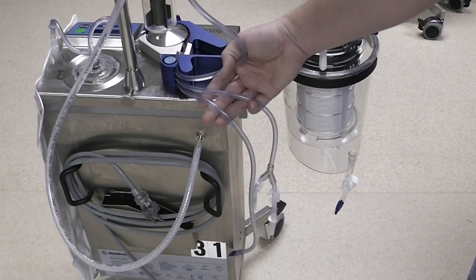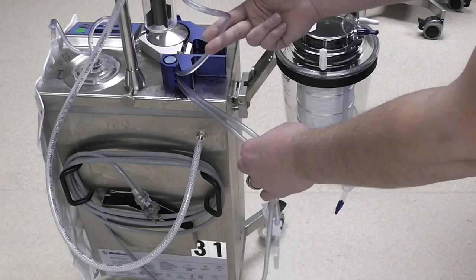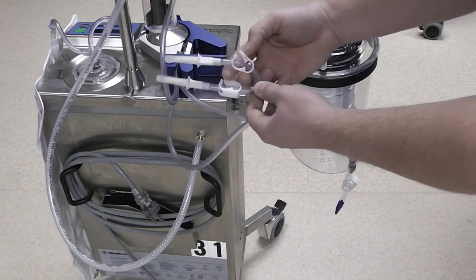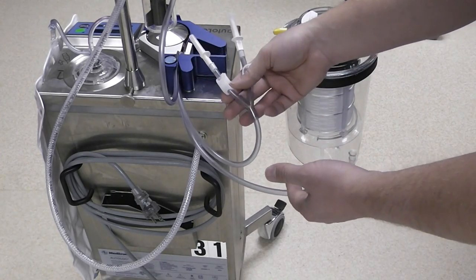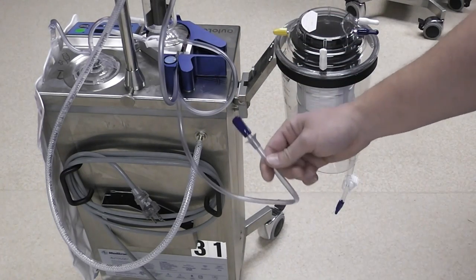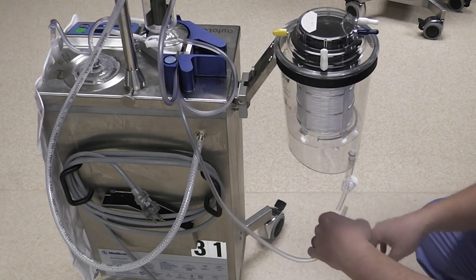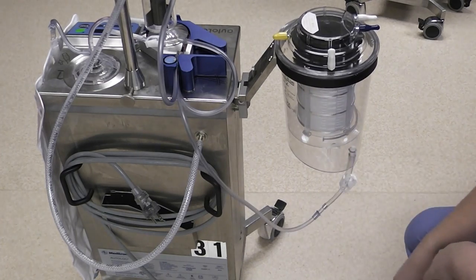Now we are looking at the back of the machine. These are those three lines coming off of that fitting. The top line goes to the collection bag. The middle line has two quick prime lines on it — we want to close both of these dura clamps. This is where the three liter wash bag will be connected once the cell saver is actually used. The bottom line has a blue cap on it — we will remove that and attach it to a line with a corresponding blue cap at the bottom of the reservoir.